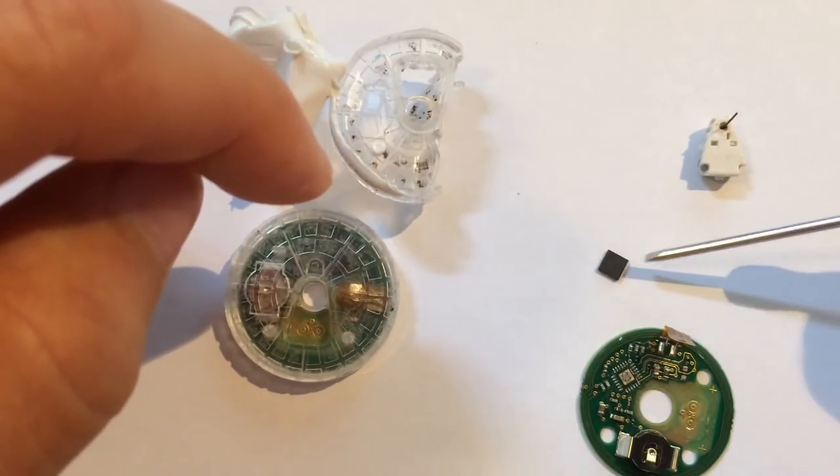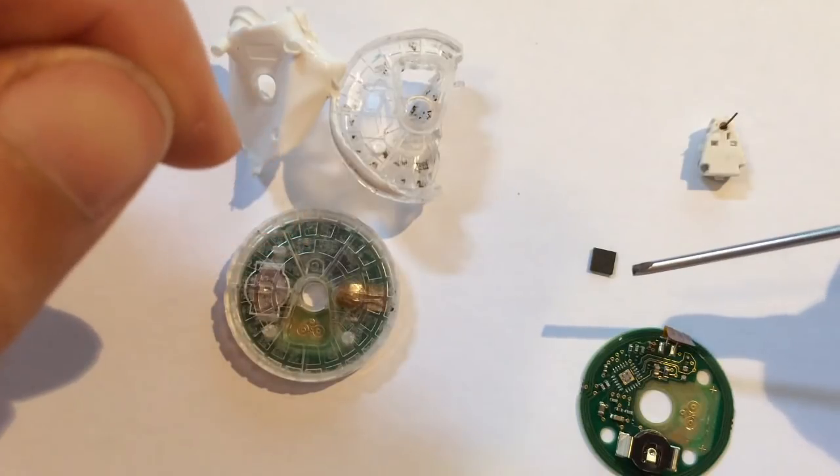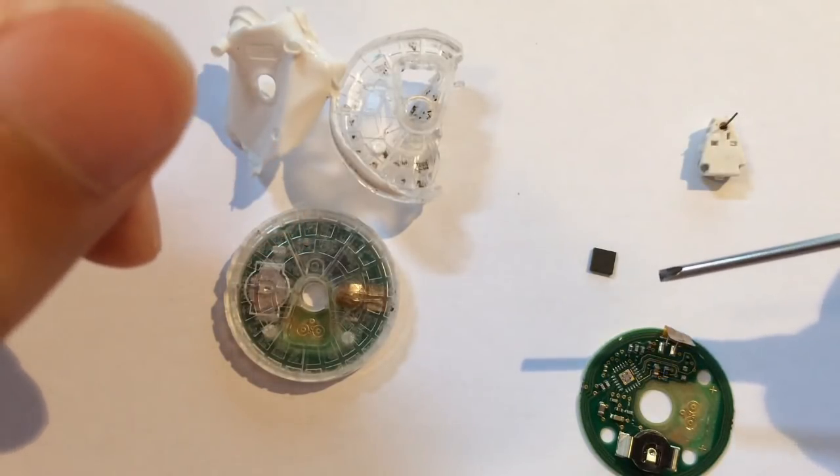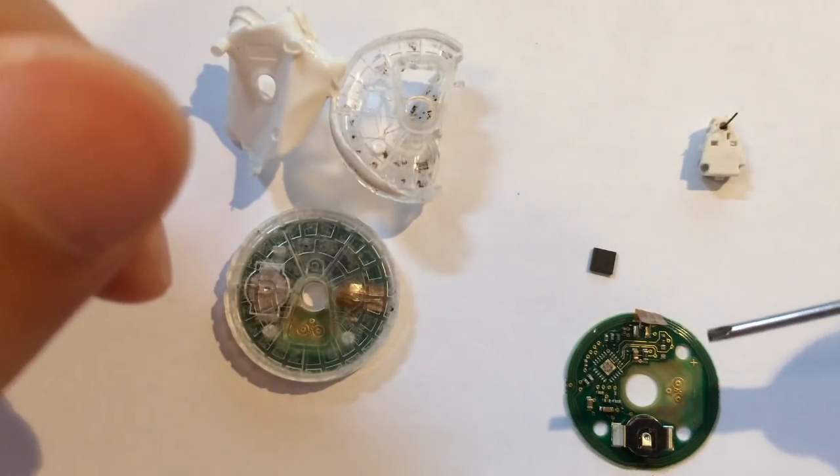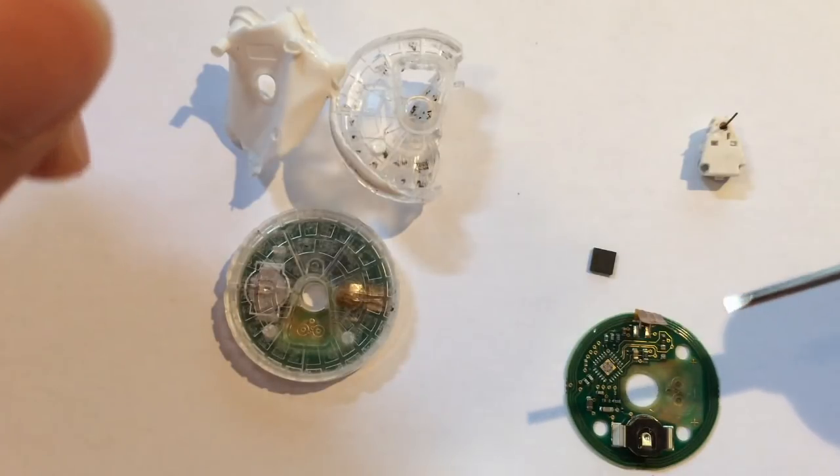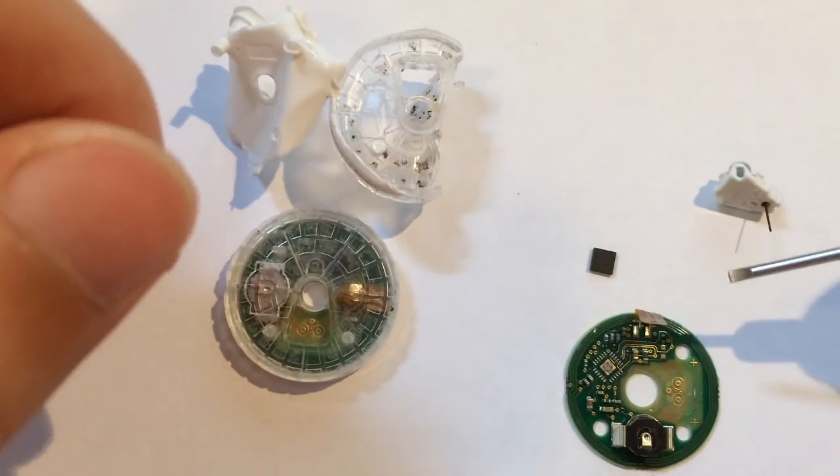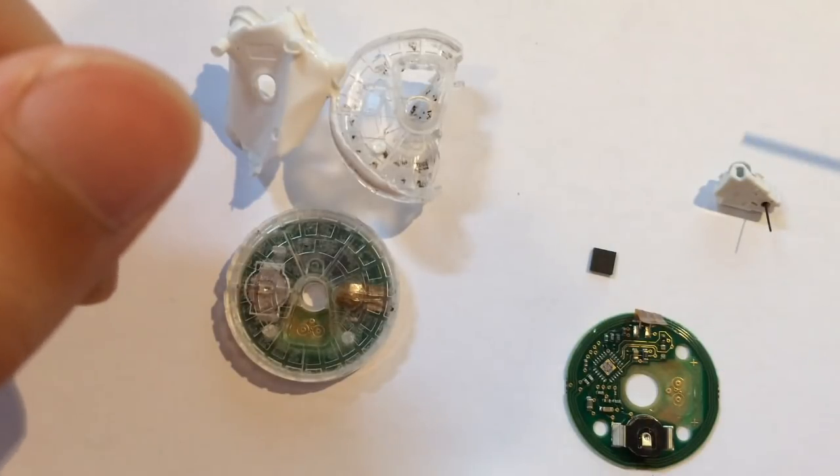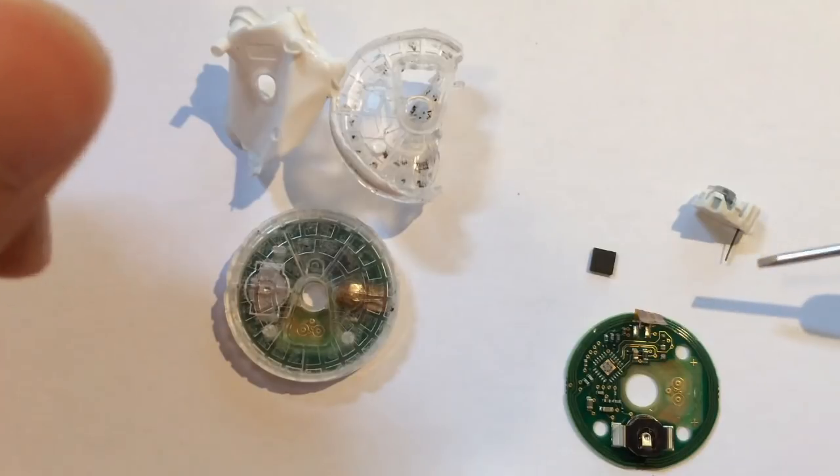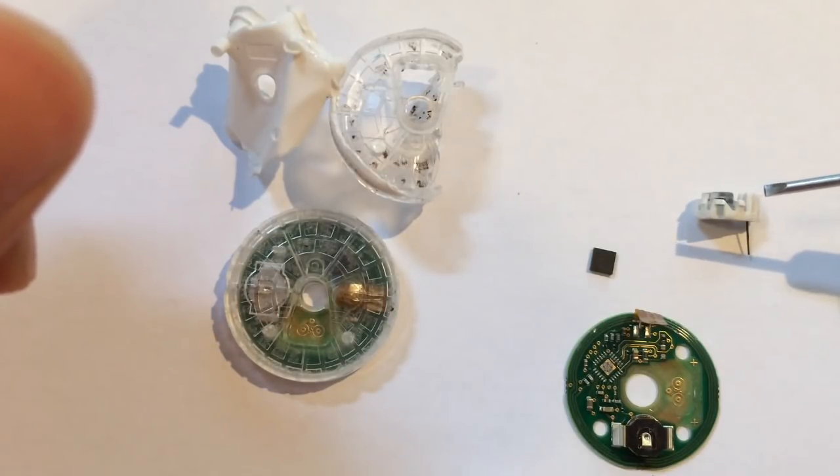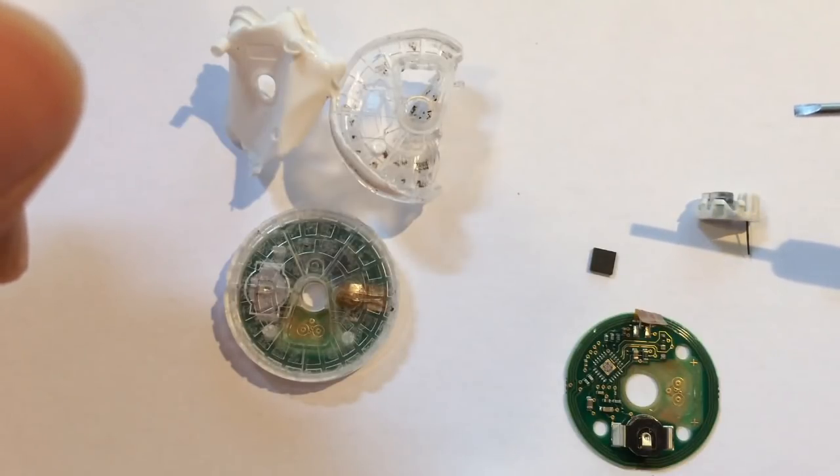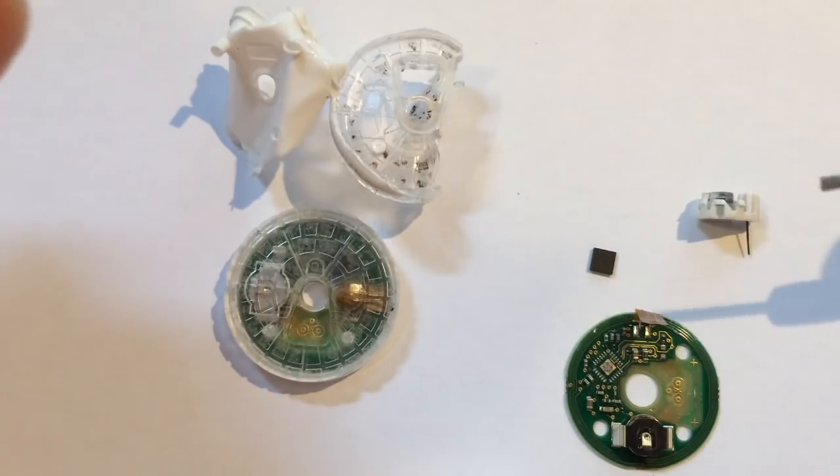The chip used is a TI Texas Instruments RF430 sensor transponder. It's got a 14-bit ADC, basically for the measurement of the sensor, which would then measure a voltage to see what your glucose is on a specially designed electrode. It also has a 16-bit MSP430 microcontroller to do all the thinking and the brains of the operation. Now, I'll change over to the screen and we'll have a look at the chip that's used.